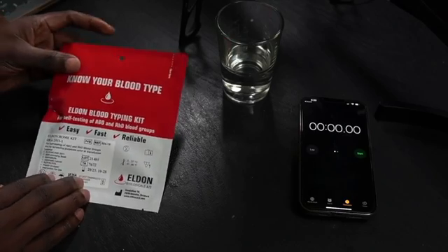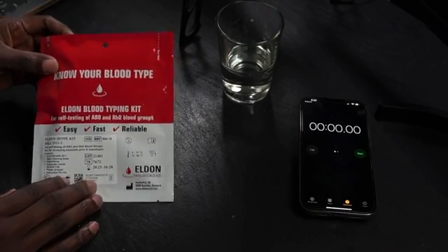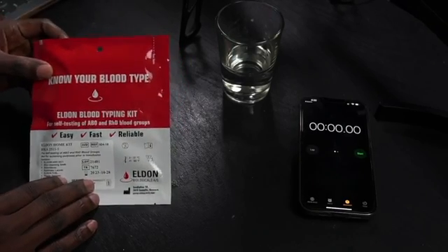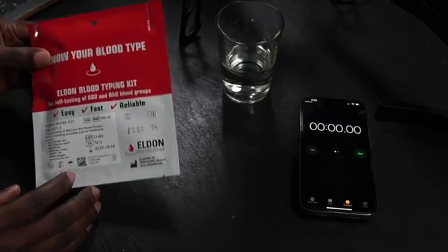Well, as great as it is to know all of that theory, how do you know what blood type you are? Fortunately, Eldon Card Biologicals has created a very simple system for figuring this out, and you can get these kits on Amazon for under 10 bucks.